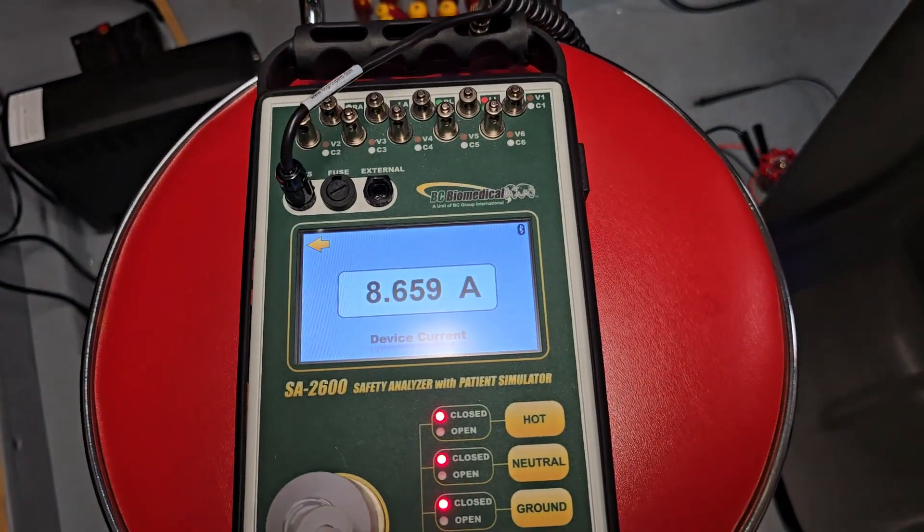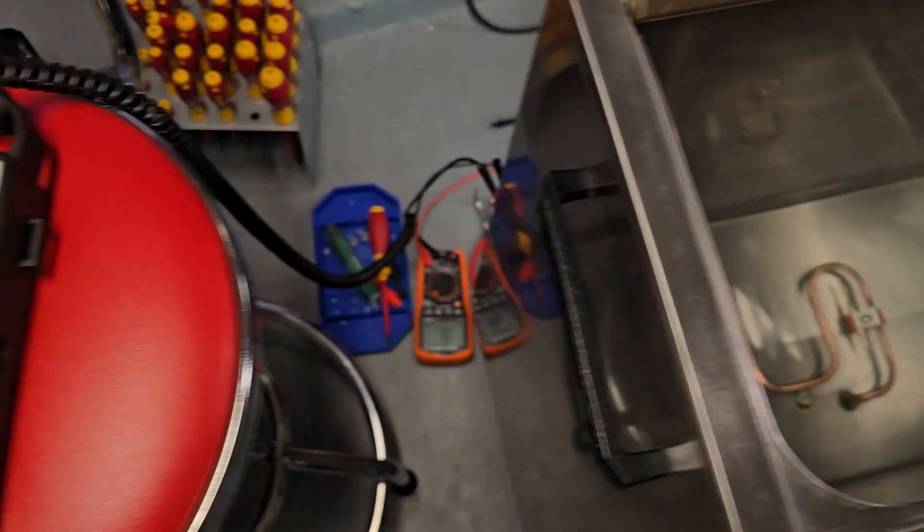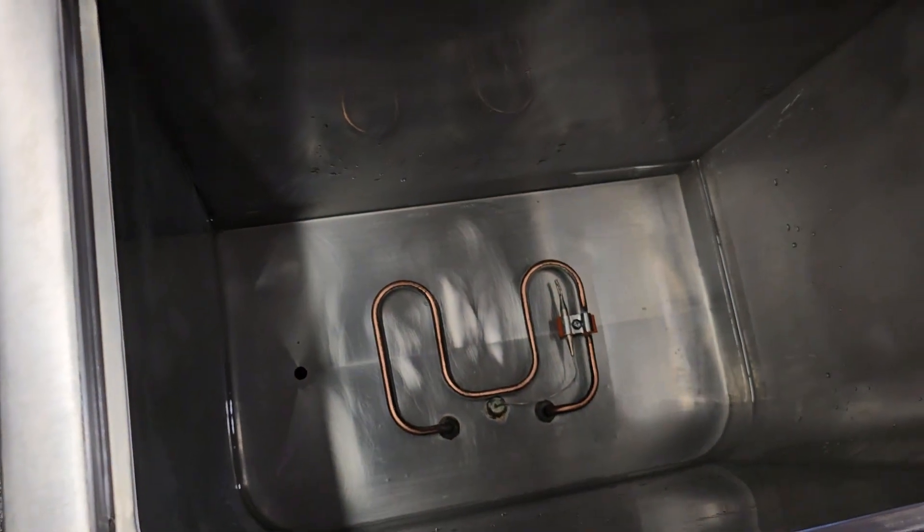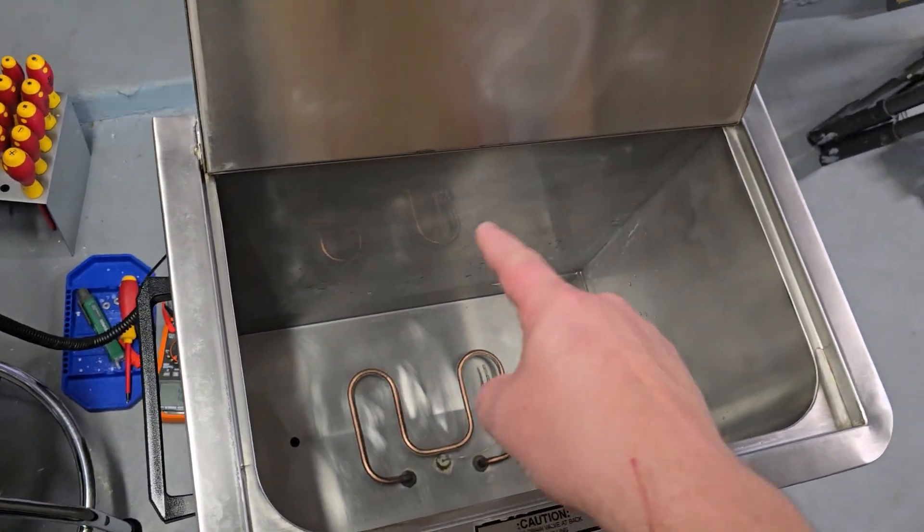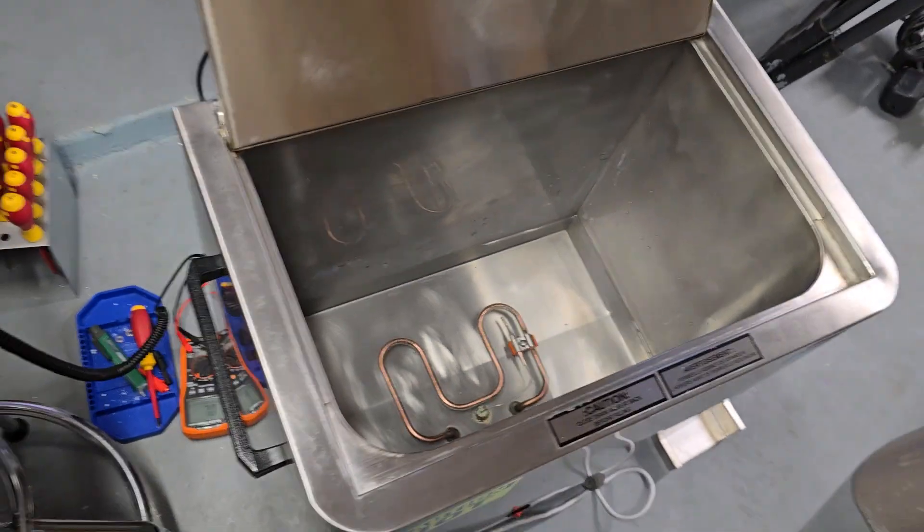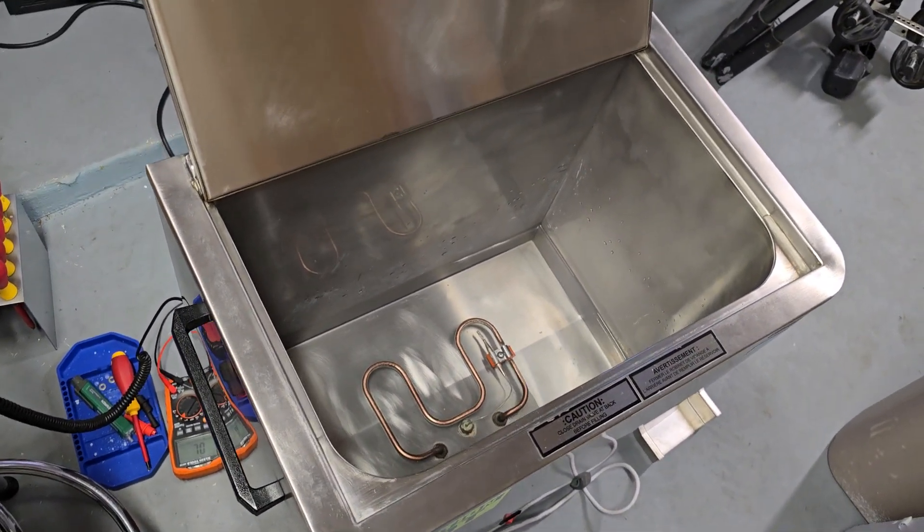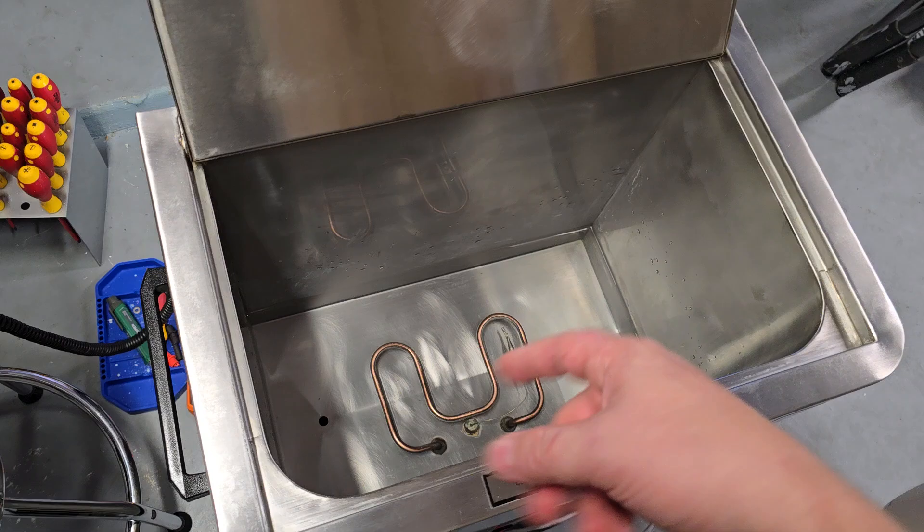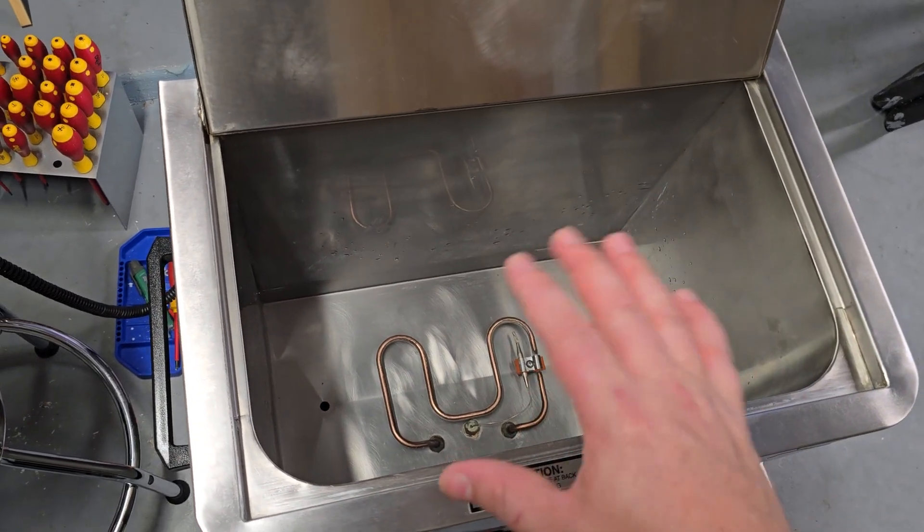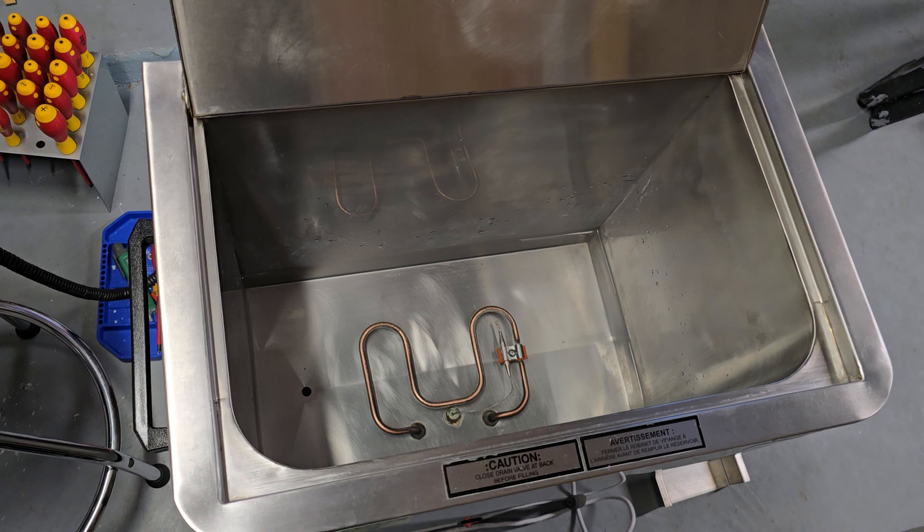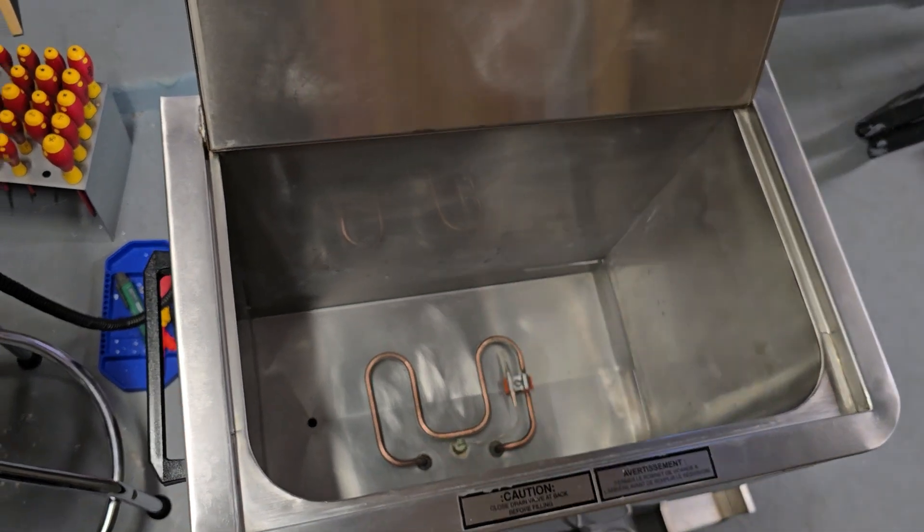So here we go. I'm going to go ahead and let it get the temperature. We're going to monitor it and then maybe when it gets up to temperature, down below you've seen some of those spade connectors look a little questionable. We're going to check for oxidation due to heat but if it seems like it's solid we'll go ahead and do a temperature calibration on this guy and it will be good to go.